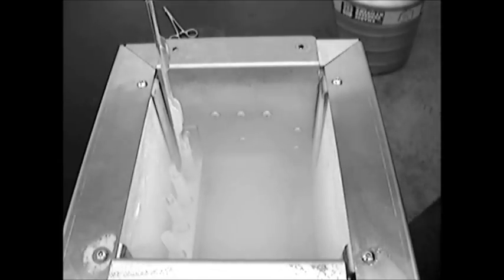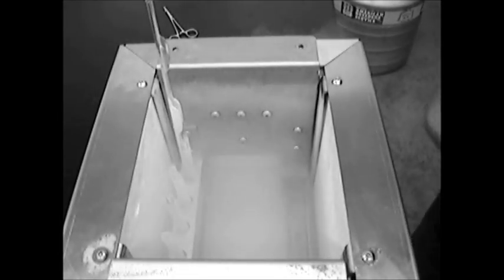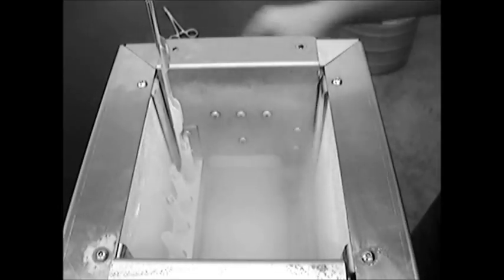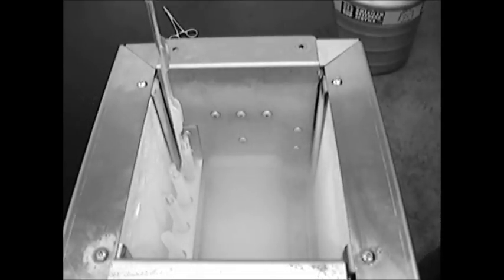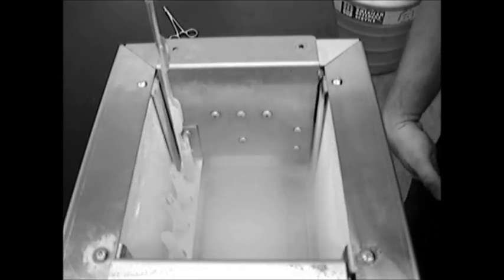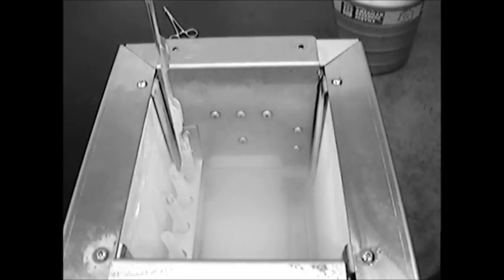Okay, our freeze cycle is complete and I've added four 10 millimeter goblets and a 10 millimeter cane to our goblet holders that are along the side of the freezing rack here. And I've went ahead and caned up or actually put in the goblets 15 straws that are ready to be transferred into our nitrogen tank for long-term storage.